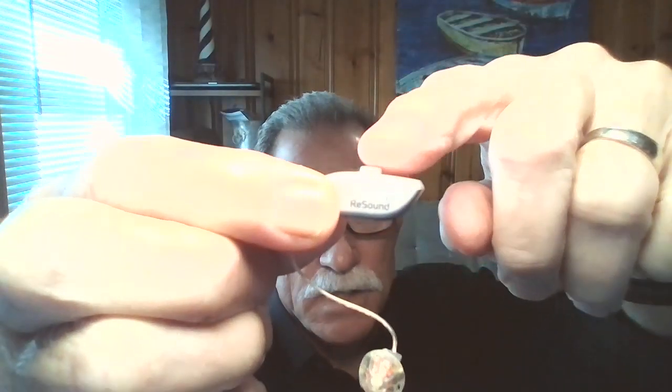Third, I chose this because it has a button on the top that you can control right here. You can control it locally with the hearing aid itself, or Resound has an app that you can use on your smartphone to control it via Bluetooth. I chose this model because I use the Bluetooth a lot — that's mostly how I control it.